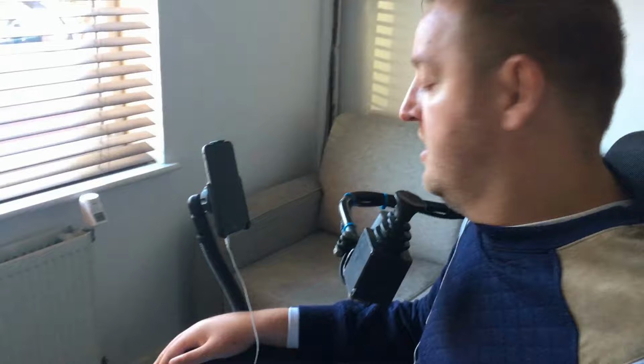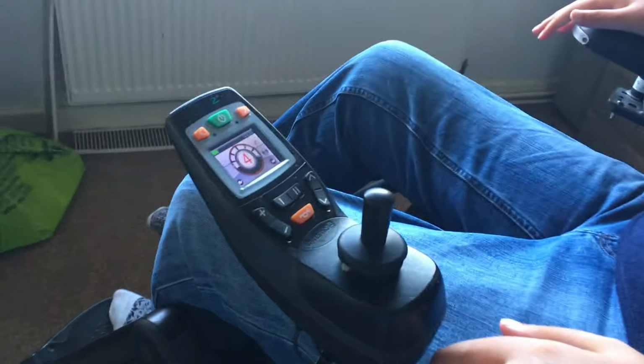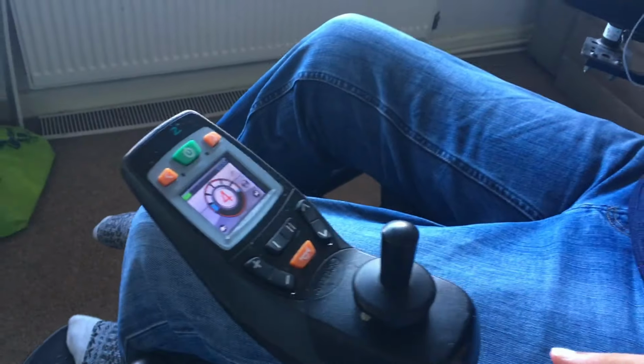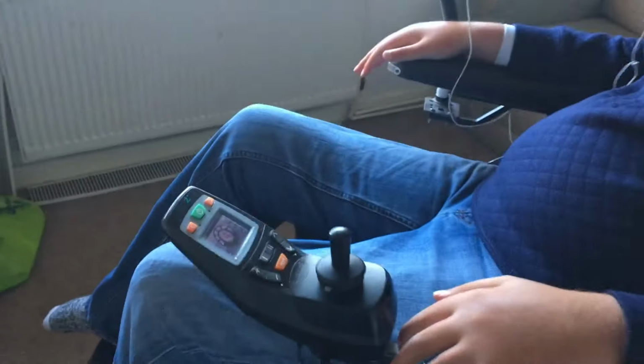So on a day-to-day basis, I will obviously get up in the morning, and my first priority is to move out of the bedroom. So if you look at the DX2 here, you'll see that the function is number 4, which is my speed. On the wheelchair, I can go left and right. I use a chin-controlled joystick, by the way. So forwards, back, and left. Right. Done the wrong way, of course.